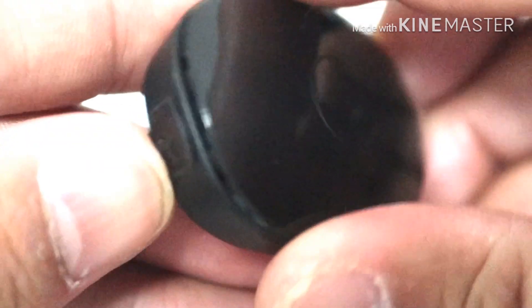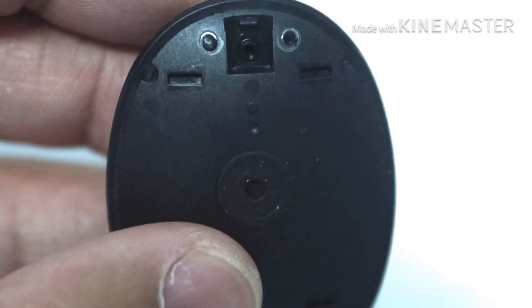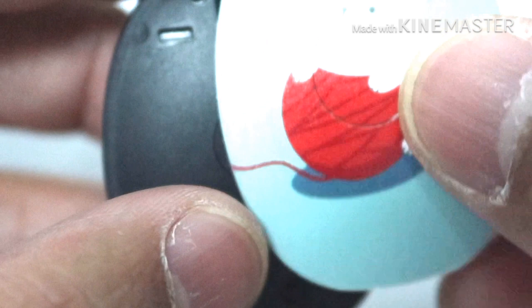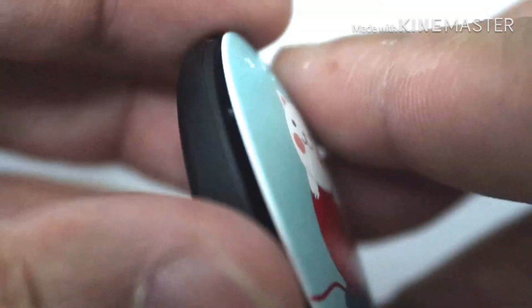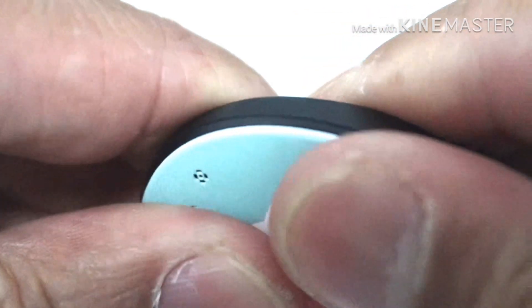In this video, we will be teaching you how to replace your Rondo 2 cover. To start off first, find the latch behind your audio processor and try to poke out or remove the cover using your fingernails. Replace the cover and then snap it in.